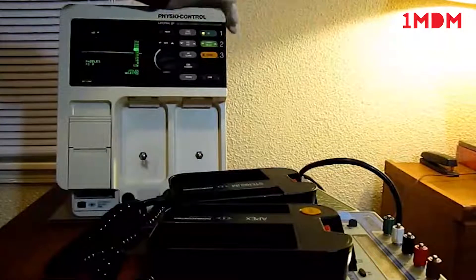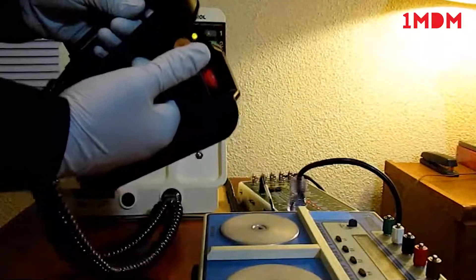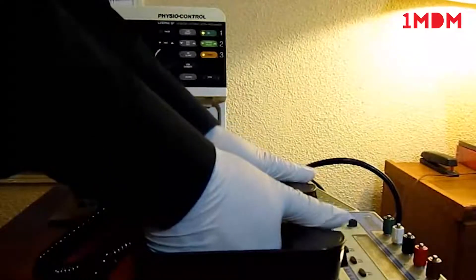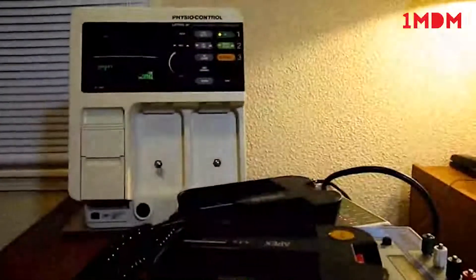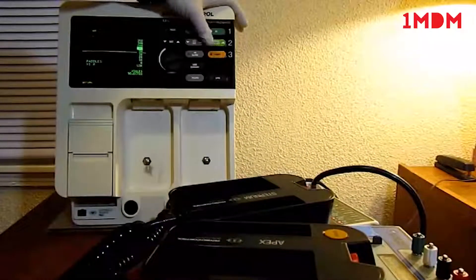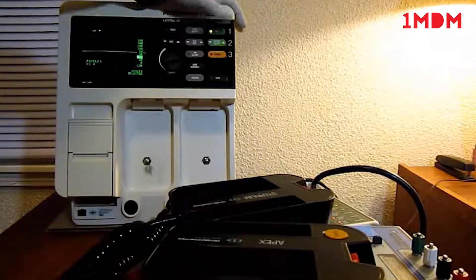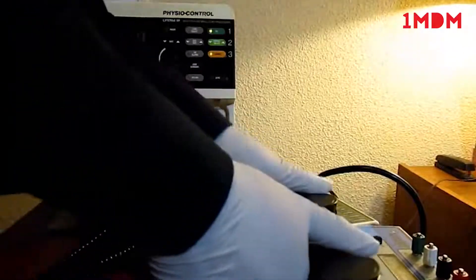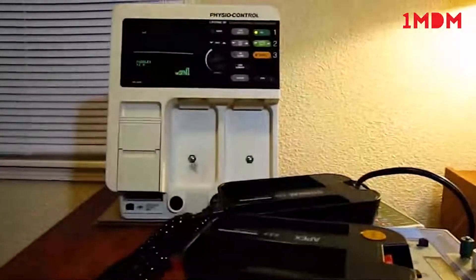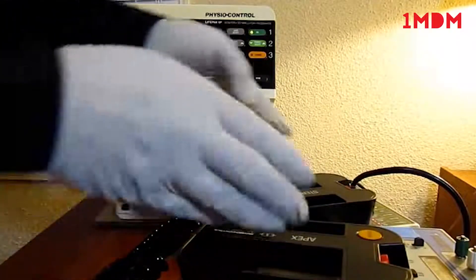Now we'll do 100. The output is 98.2. And we'll do 20. The output is 19.5. We're also going to do a paddle check.